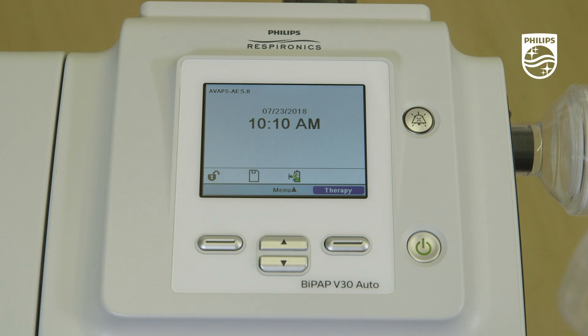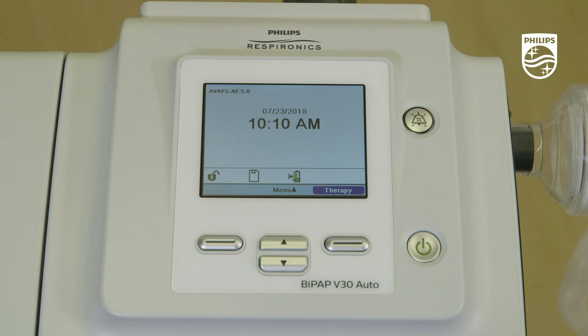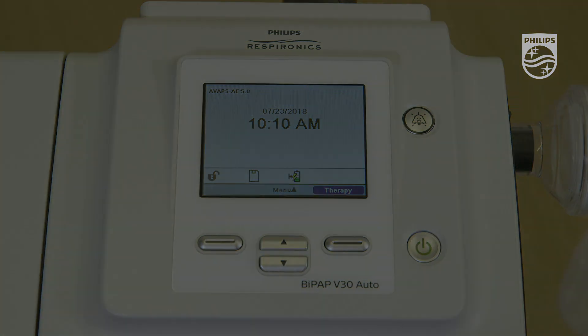Now that your V30 Auto is ready and you're familiar with its basic operation, let's discuss setting it up for patient use.